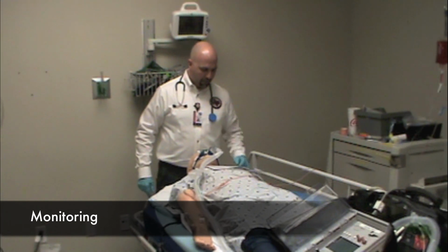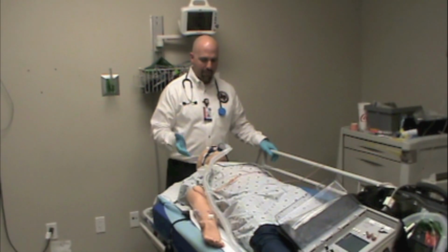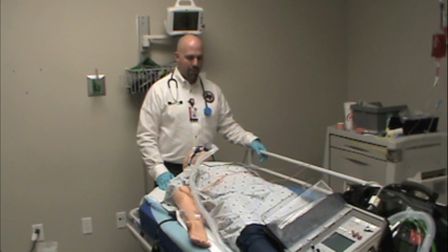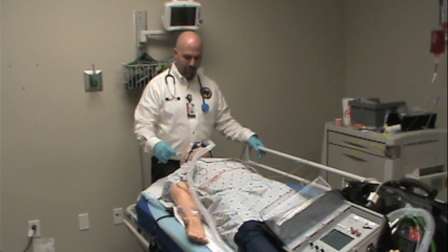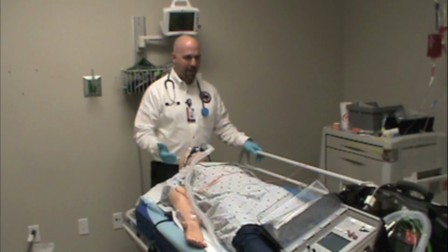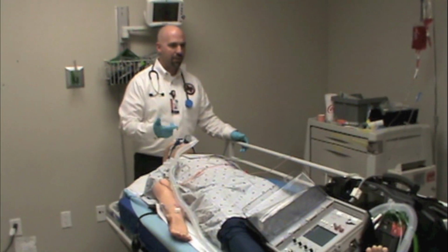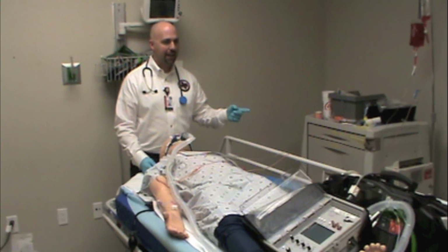You always want to make sure that the patient is fully monitored. So the gold standard for monitoring a patient on a ventilator is for them to have pulse oximetry in place and for them to have end-tidal CO2 monitoring. A colorimetric device, although it's okay, doesn't last very long, and if it gets wet, it's pretty ineffective. So the nice thing about having a fully invasive monitor is that we have end-tidal CO2 available. Your end-tidal CO2 should be on the circuit so you can trend their CO2 and you can see how well they're oxygenating and ventilating.